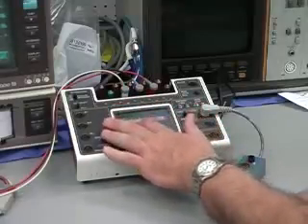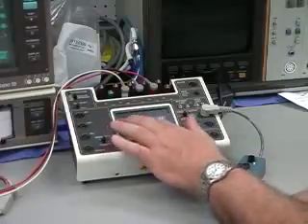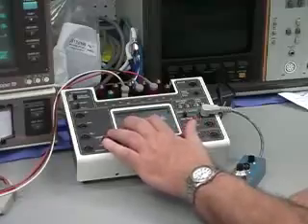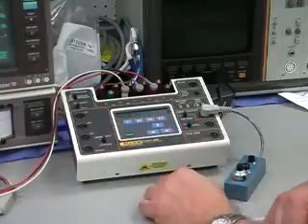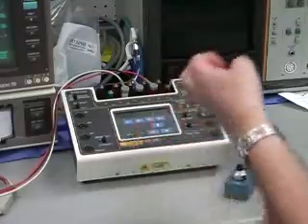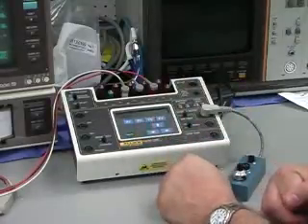ECG is just general testing for muscle and line frequency, that sort of thing. Blood pressure respiratory artifact is very helpful when you're doing the Swan-Ganz procedure, because that's where the artifact typically does occur when you're running that procedure.